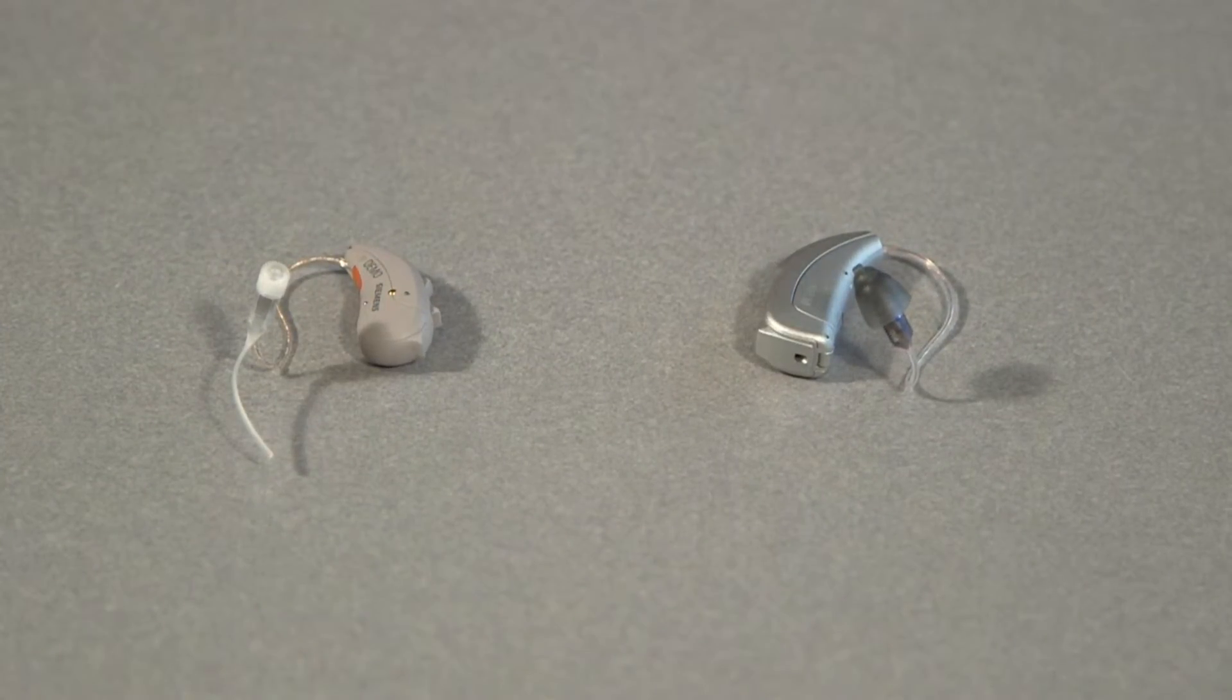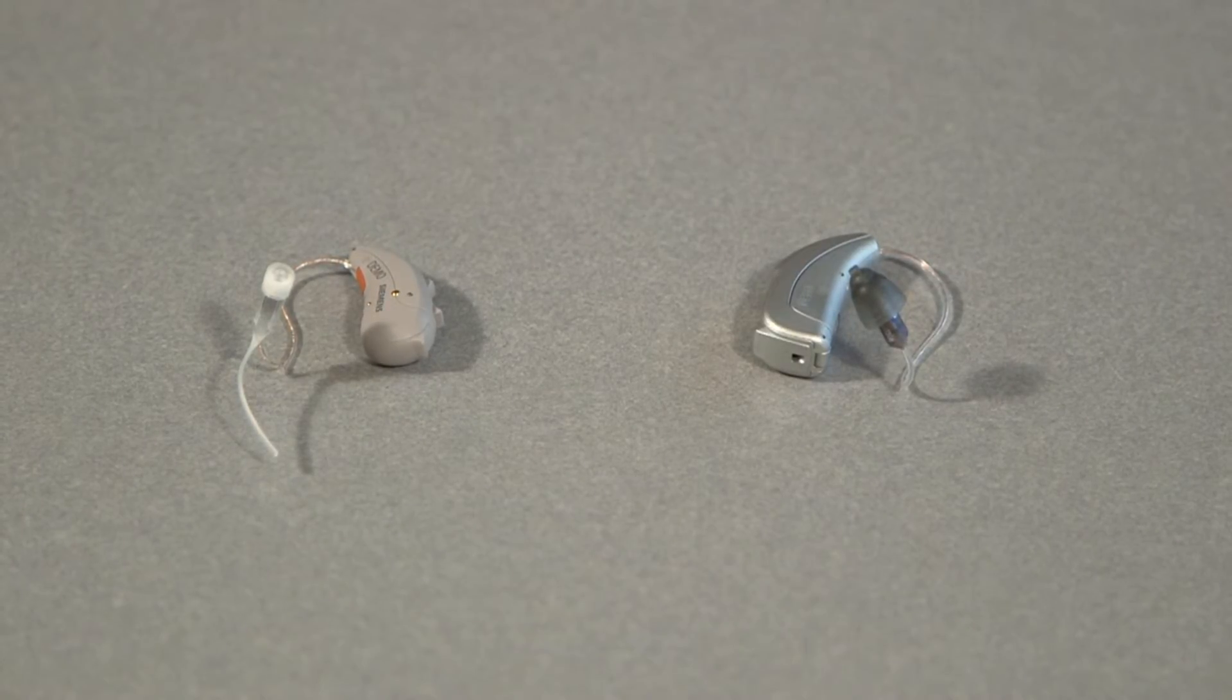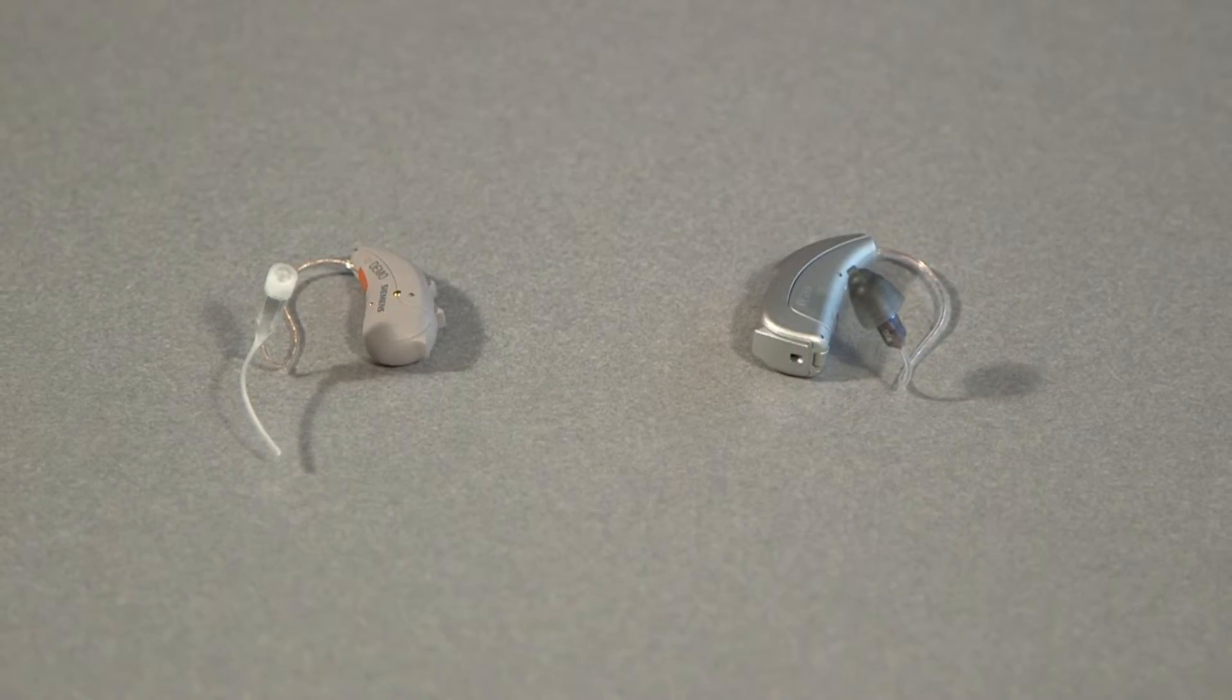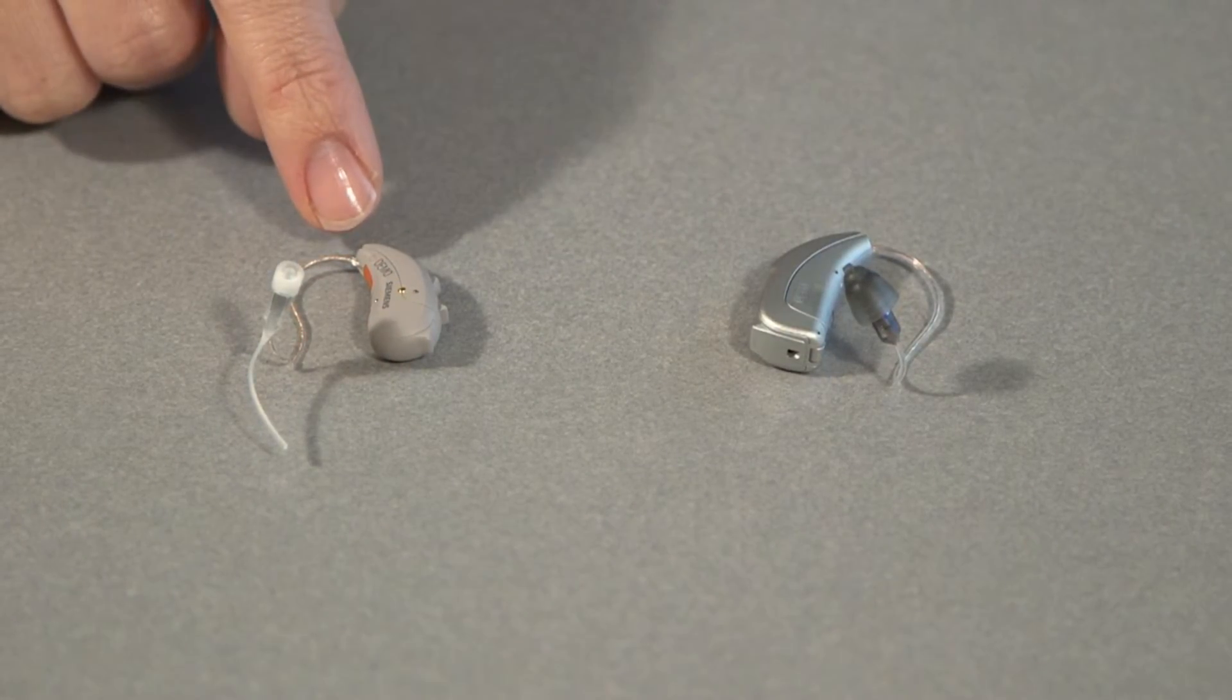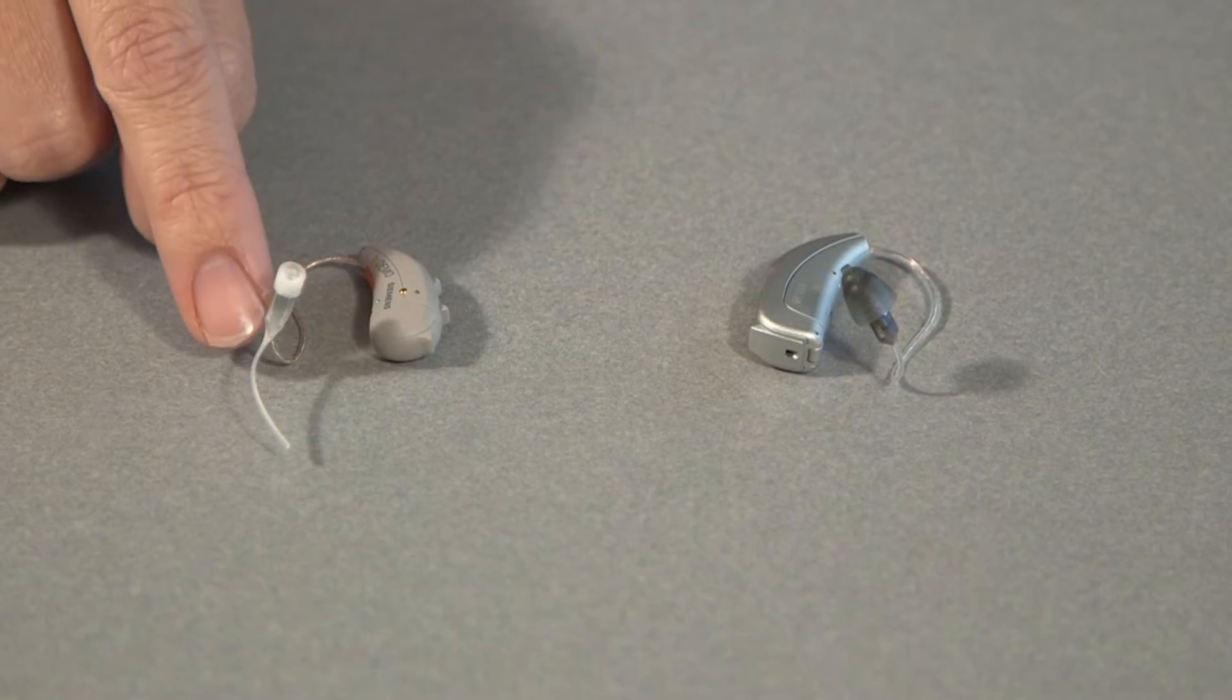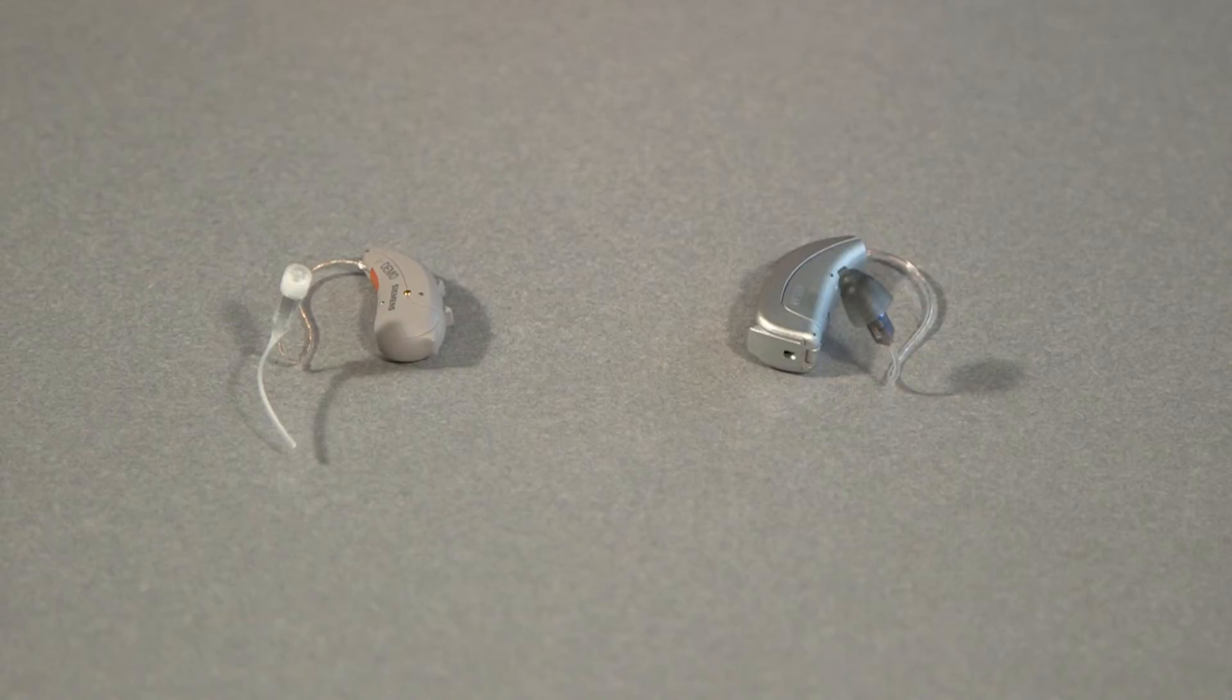The amount of times that you have to replace the domes or the wax trap or really troubleshoot the hearing aids varies depending on the amount of wax that your ears produce or the amount of debris that can get into the hearing aids. If you spend a lot of time outside, dirt and other environmental elements can affect the hearing aids a little more.